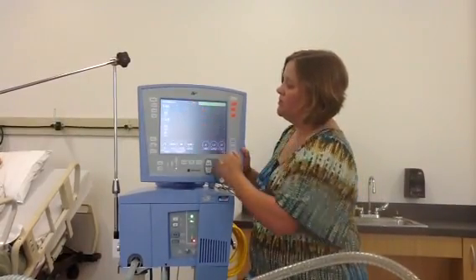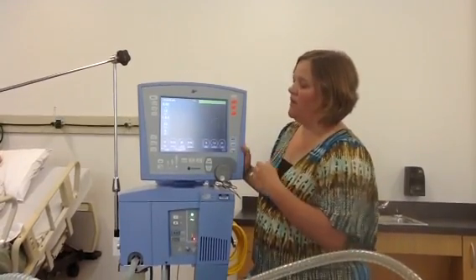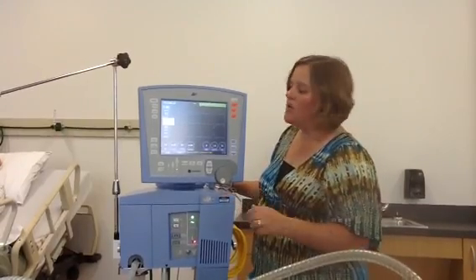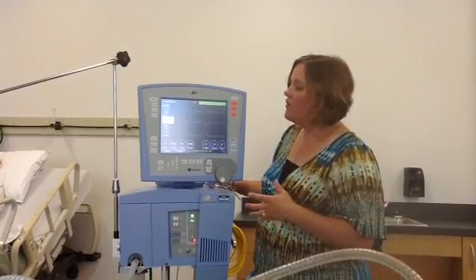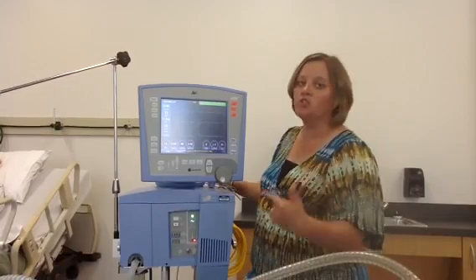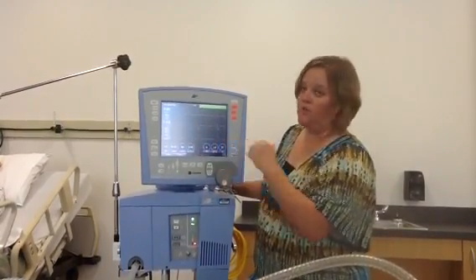You can also go into your loops and freeze your loops as well. There are lots of different ways to use the freeze button. This event button is for when you want to hook up this ventilator to a computer — you can download data to a computer. If you had any type of alarm, or if you wanted to note that the patient had a blood gas or a chest x-ray, you would use the event button, accept your event, and it will appear on your trends.